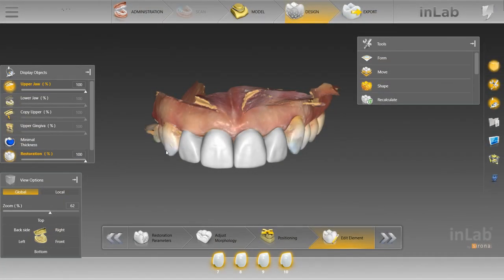So to pick up where we left off, here's a veneer case. As I mentioned, when designing a veneer case, it can be difficult to have all the freedom that may even be necessary when designing a crown. When designing a veneer, typically it's just the facial surface that's prepped. As a designer, if you're lucky, you'll get some nice interproximal preparation as well as bringing that margin as subgingival as possible — because then you're allowed to create more natural emergence and have more freedom. Also, when prepping for CEREC cases, it does require a shoulder to avoid chipping and create a nice flush marginal area.